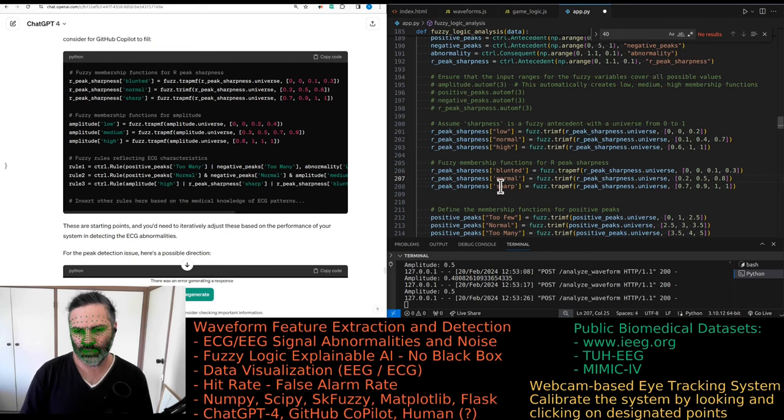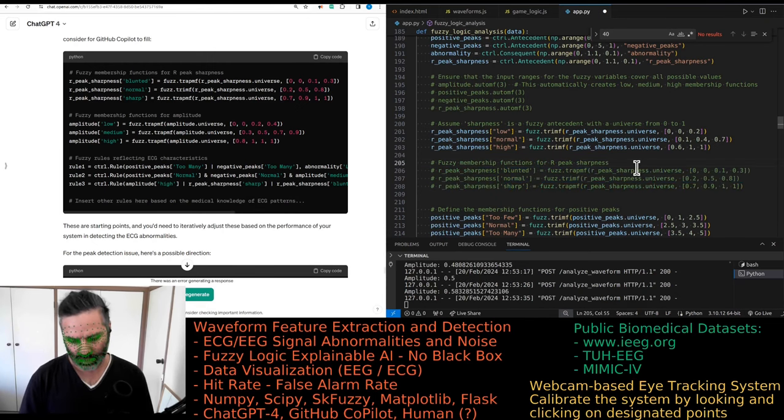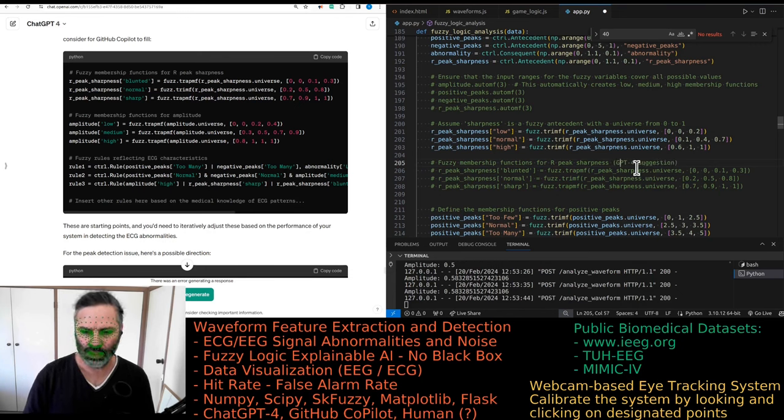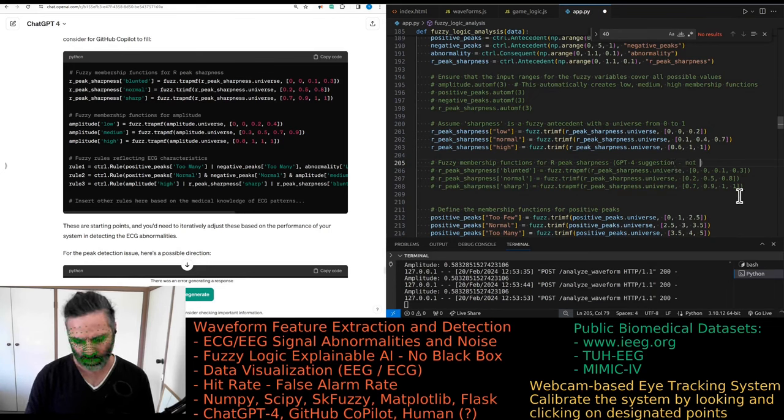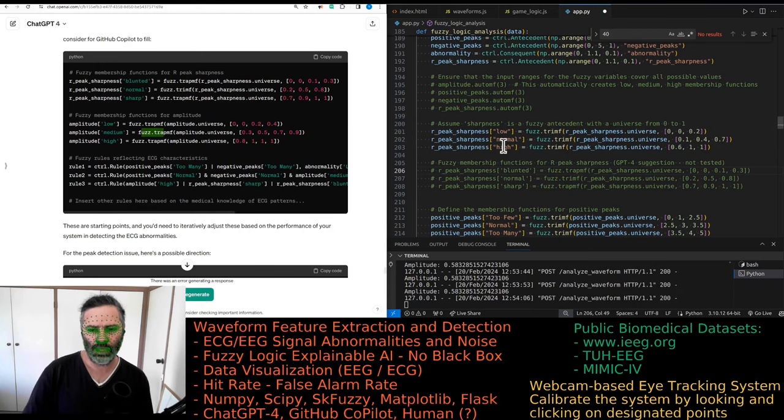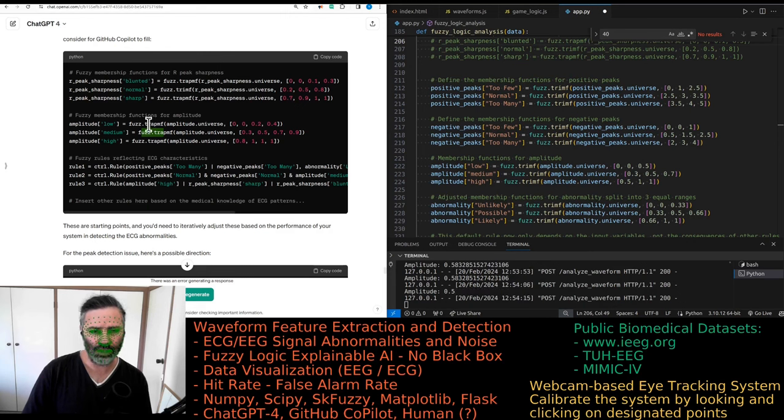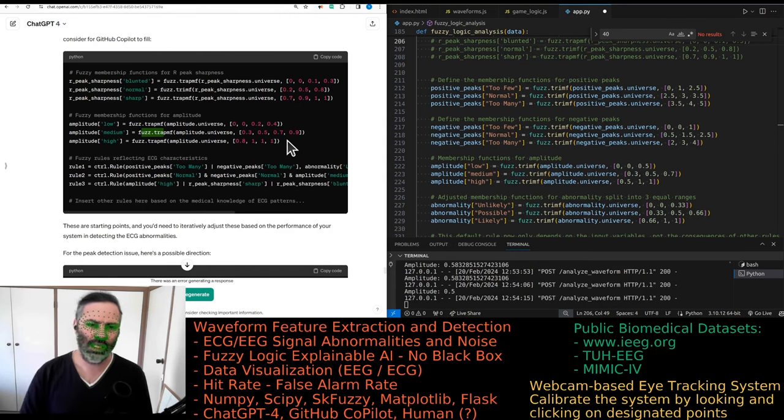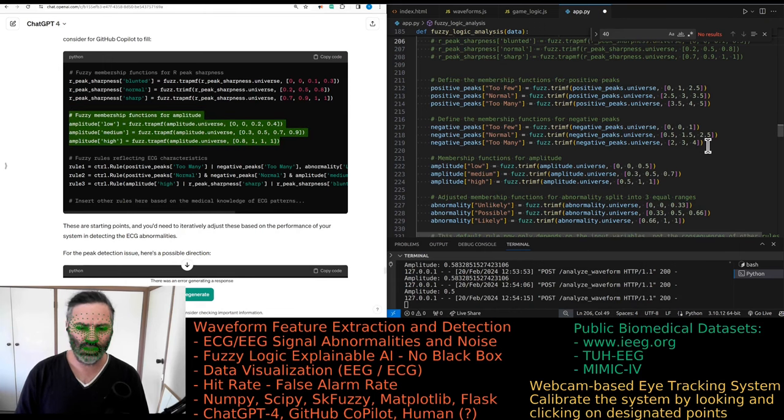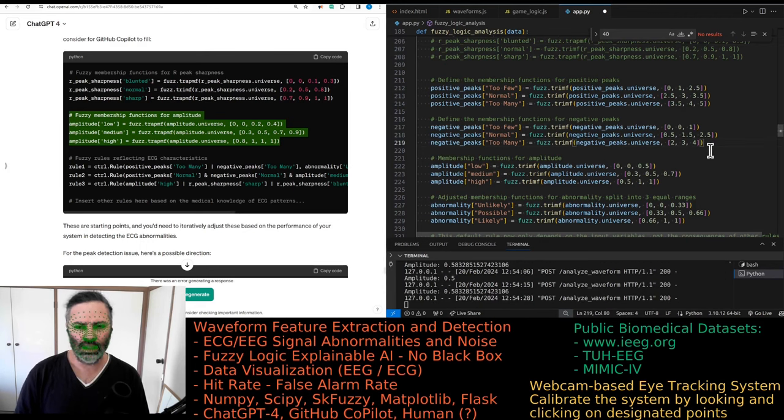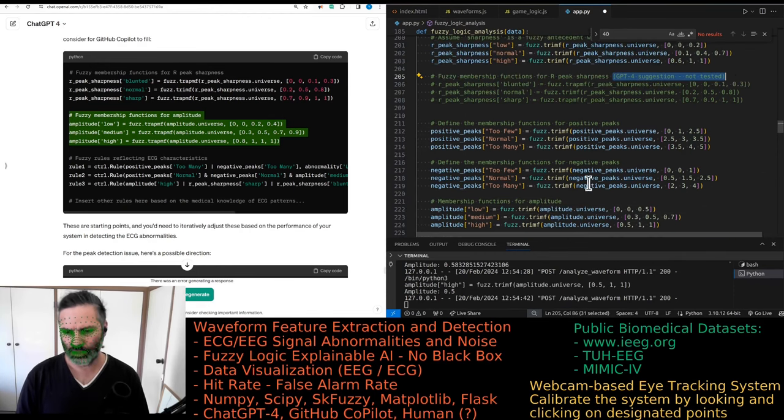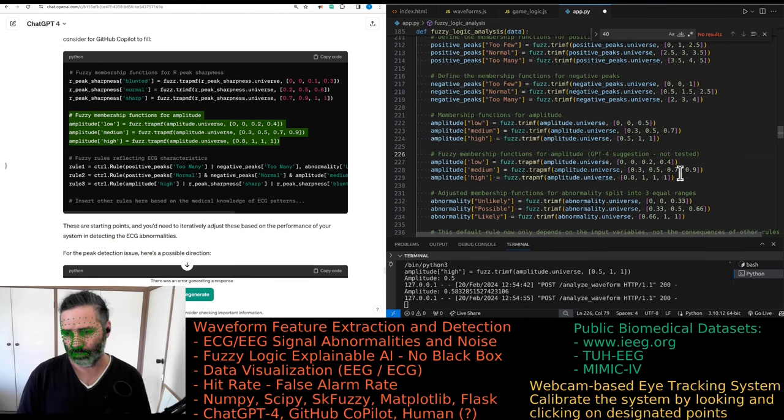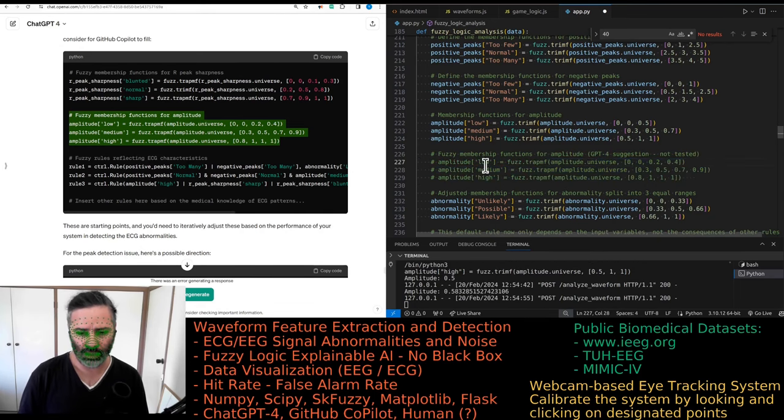I don't think this will make much difference so comment that out. It's doing the same for amplitude, using trapezoidal membership functions instead of triangular ones. I used trapezoidal ones before, they kind of make more sense, but the triangle ones should work just fine. I'm not sure why they decided to make these suggestions.